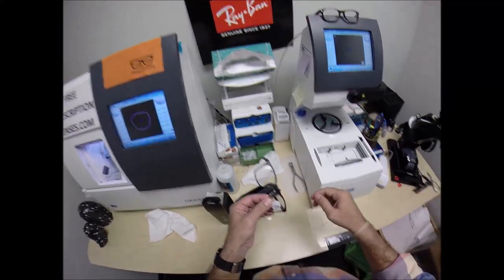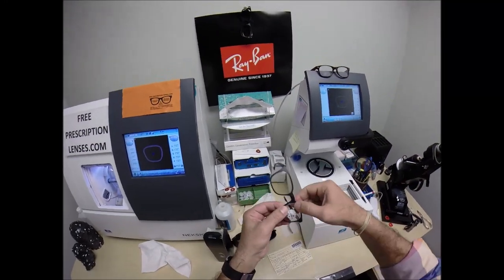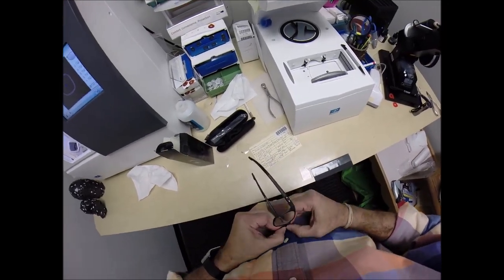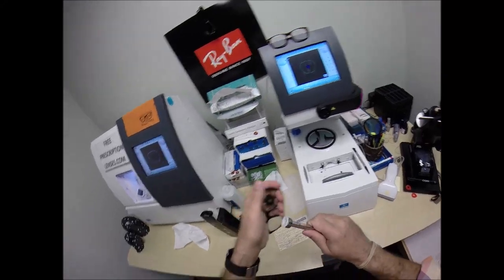His name escapes me now. Just like Fargo during the next ice age. All right, so again, tuck it into the outside corner. Push down at the nose. Come on, come on. There we go. Now it snaps in. I just had to get the leverage on there. Pop that off.